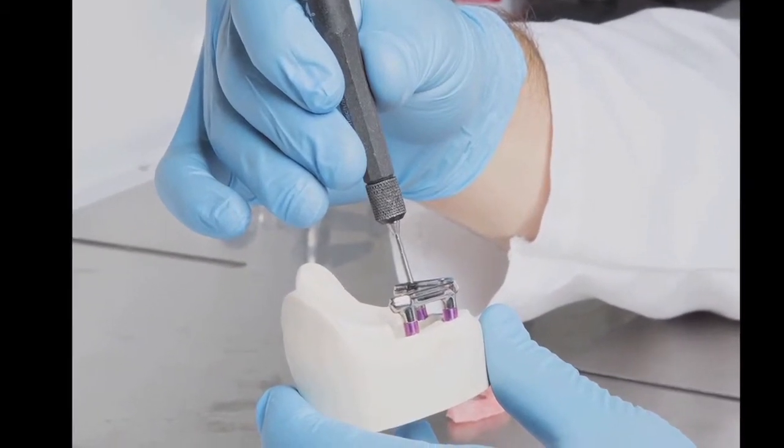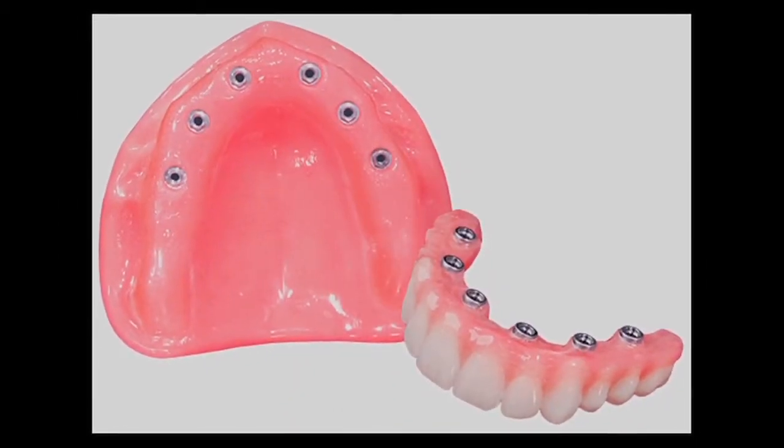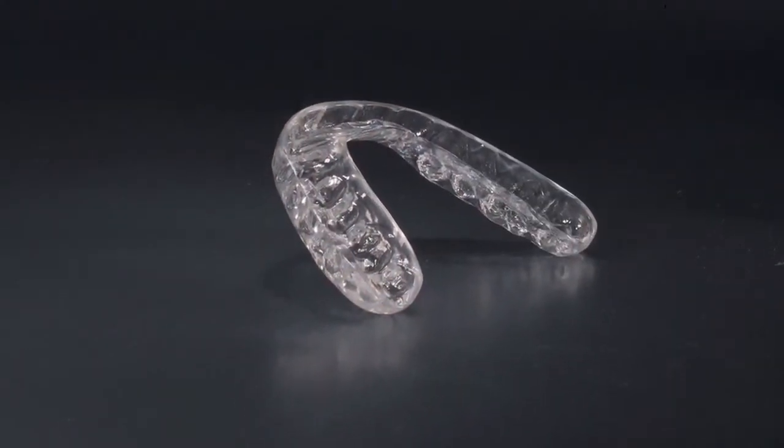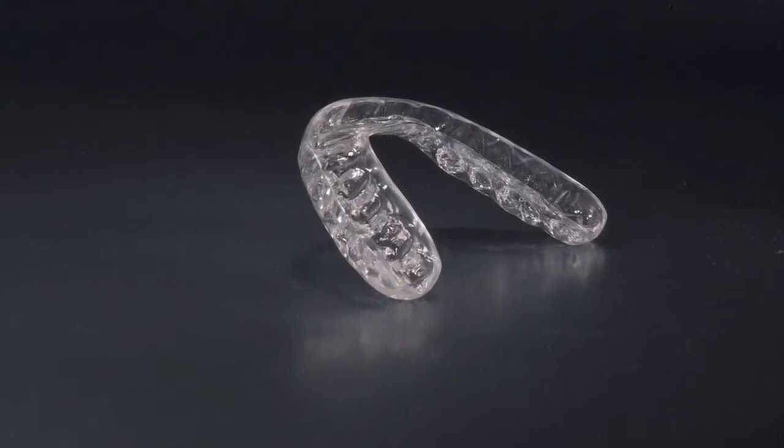The approved bar is then integrated with a screw retained hybrid or removable denture setup. A complimentary thermoform night guard is provided with each screw retained denture to help ensure long-lasting aesthetics and function.